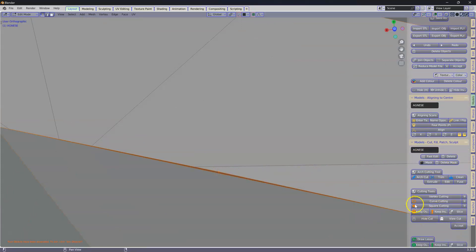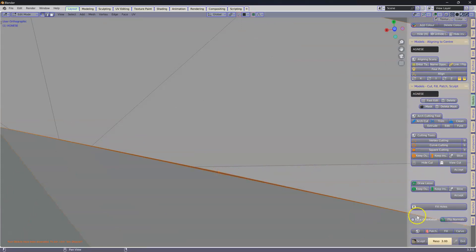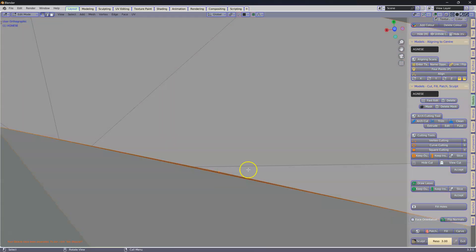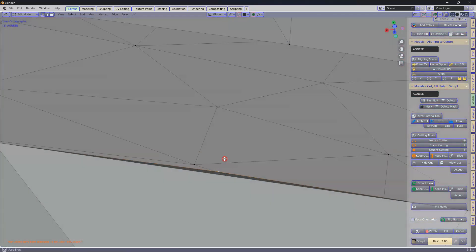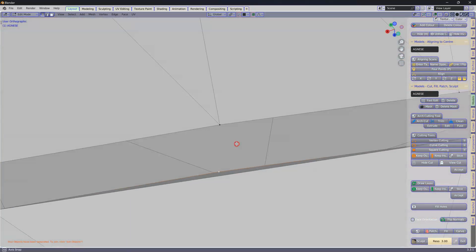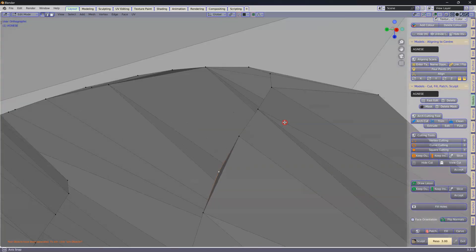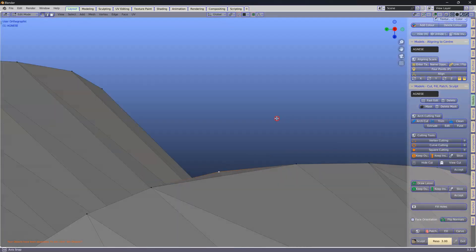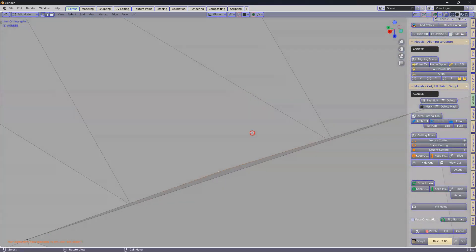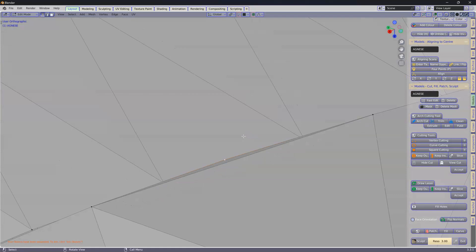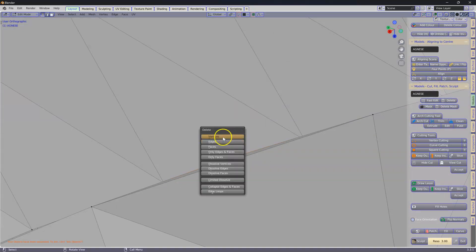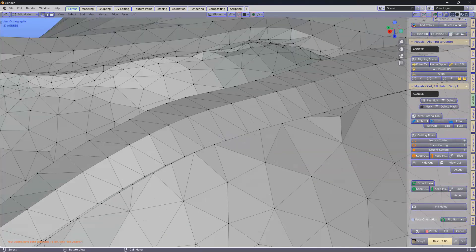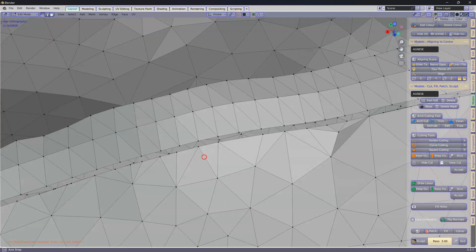So if we have a look at the face normals. It's a bit hard to see over here, but no, it's not inverted. It's just standing up like that. What I'll do is just delete that one. X, delete vertices. Let's try this again.